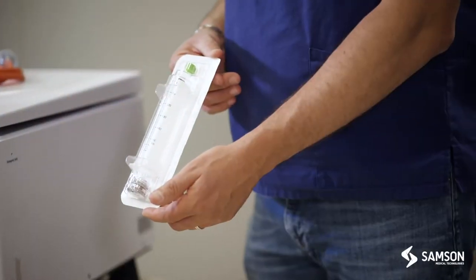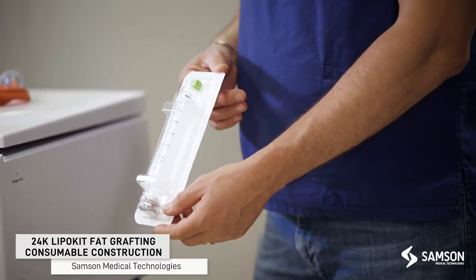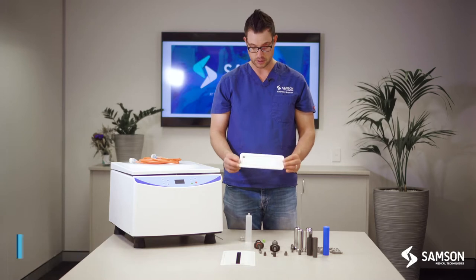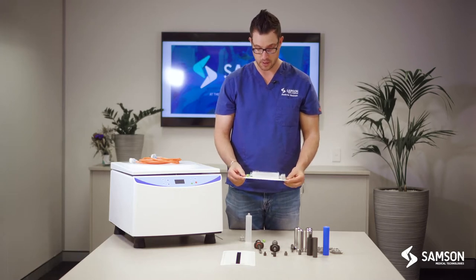This is the consumable for the 24k LiPo kit. It's called the TP101. It comes sterile. As you can see, it's single use and sterile.